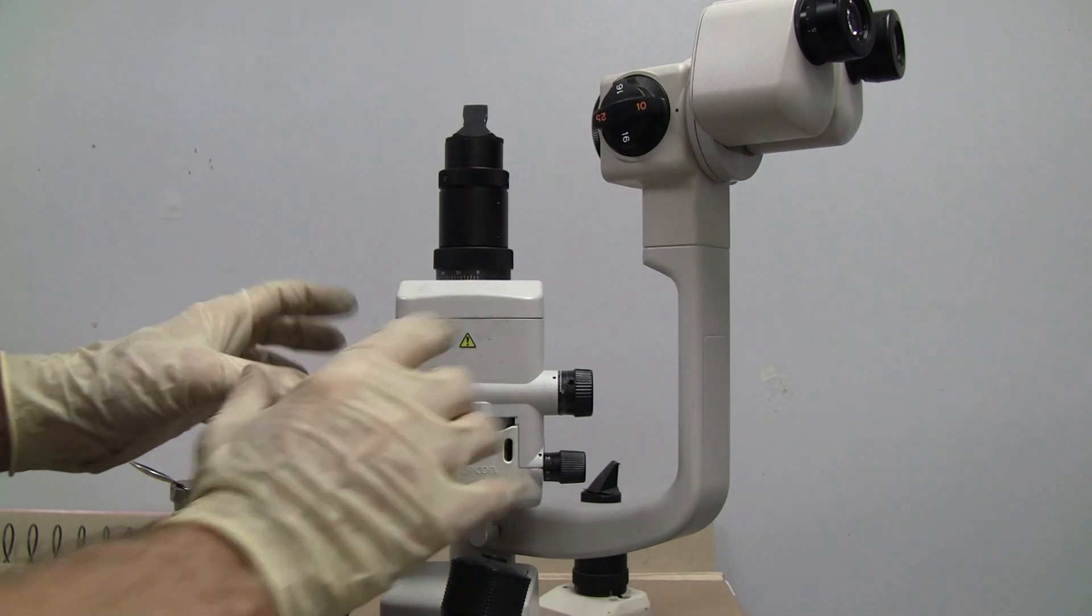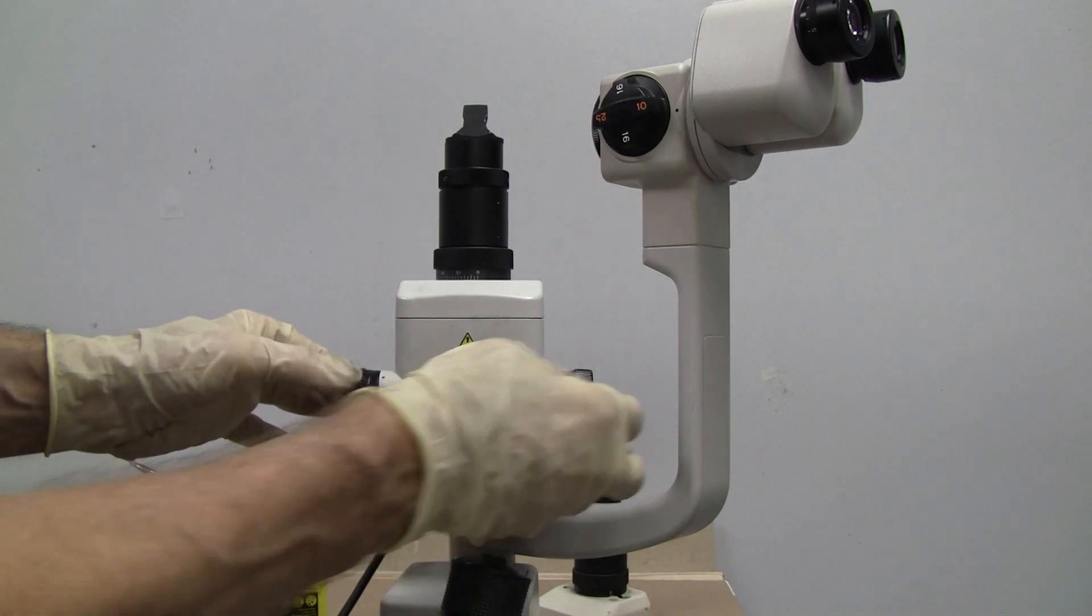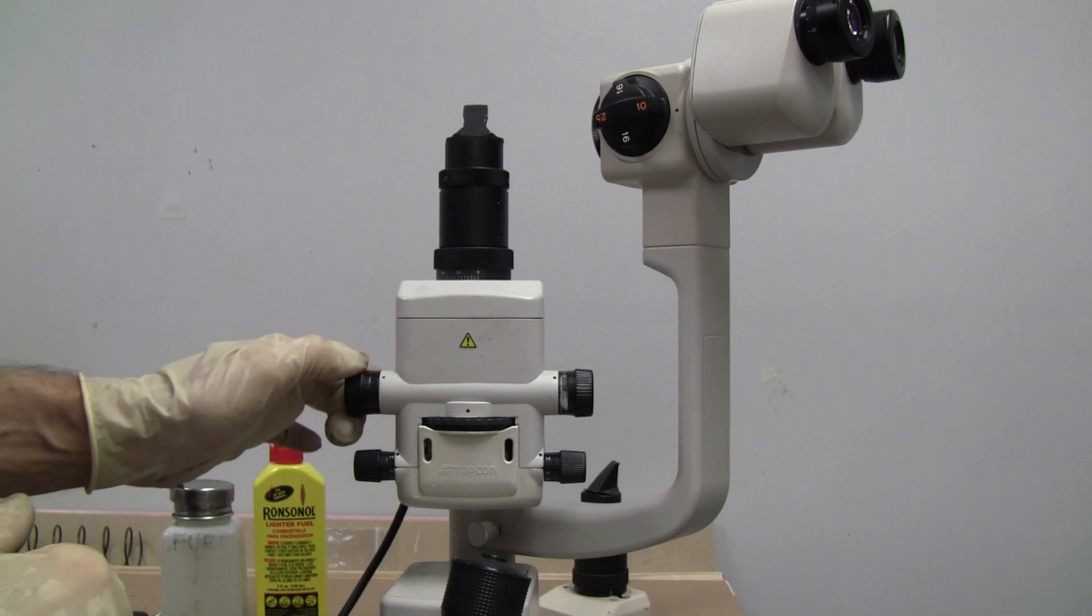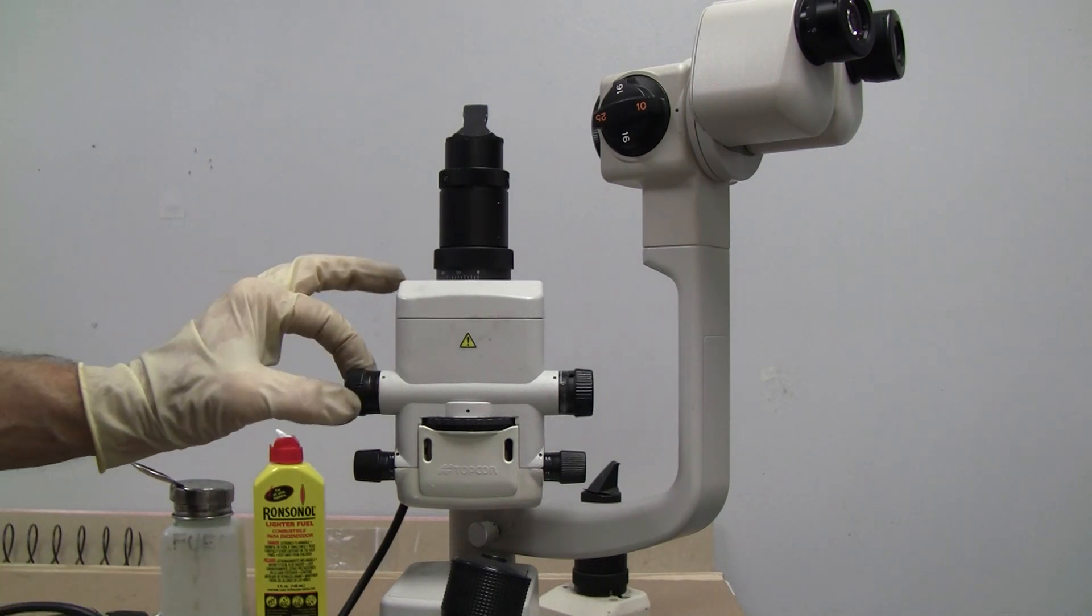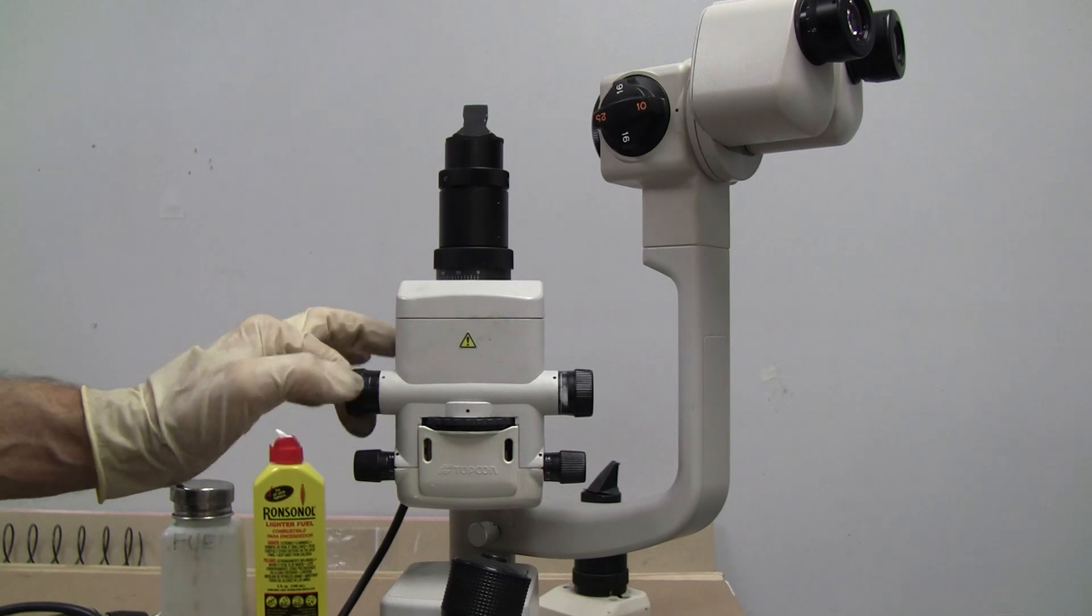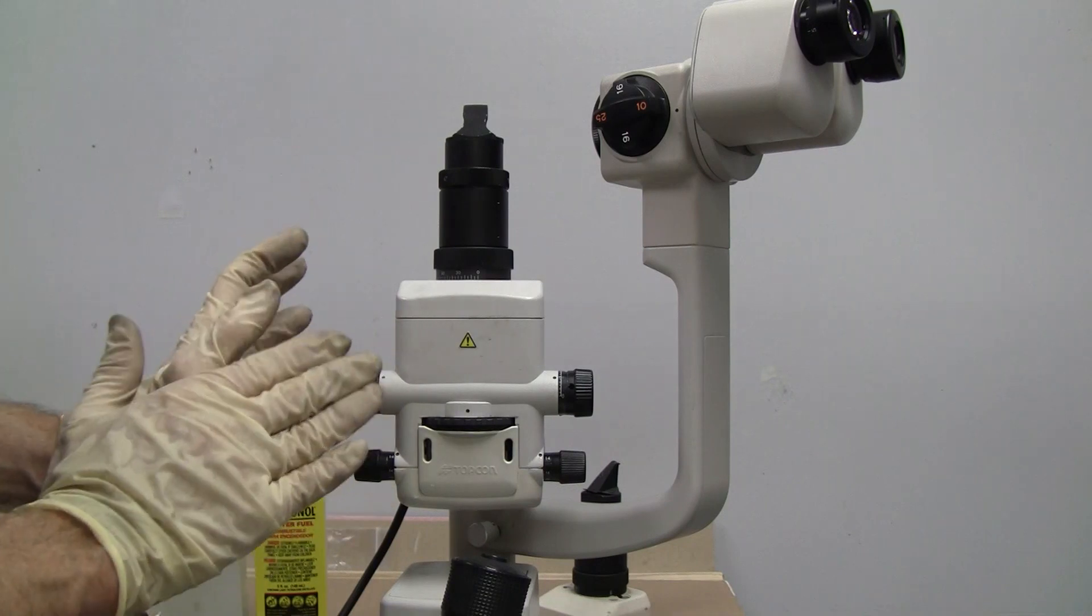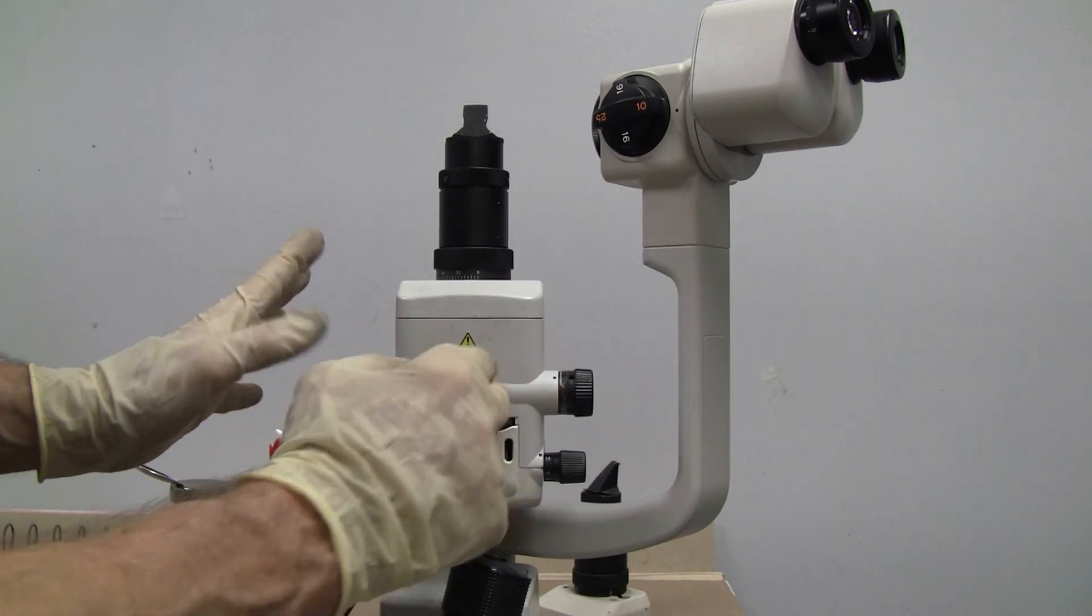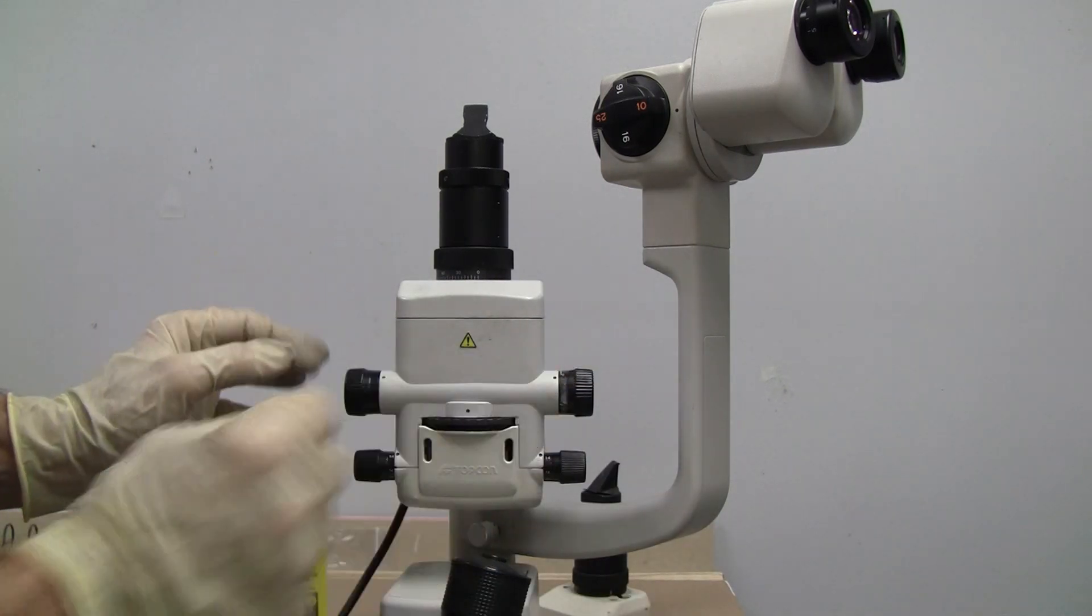But hopefully, that will be another way to resolve the drifting. This is probably the better way, although it's more involved because, if you have the right kind of grease. Because the factory setting was probably good enough. And so for this occurrence, we're just going to leave the factory tension as it is and allow the clean grease to resolve the slit drift.